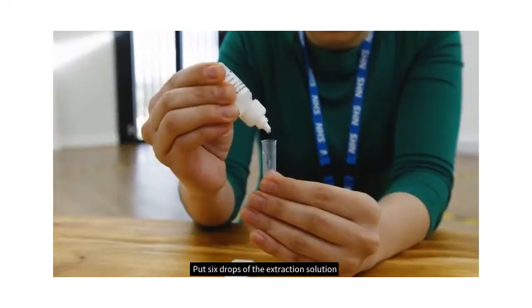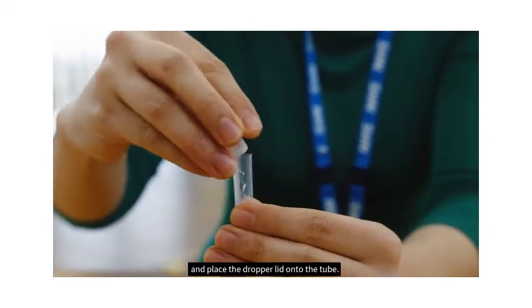Put six drops of the extraction solution into the tube. Place the dropper lid on the tube.